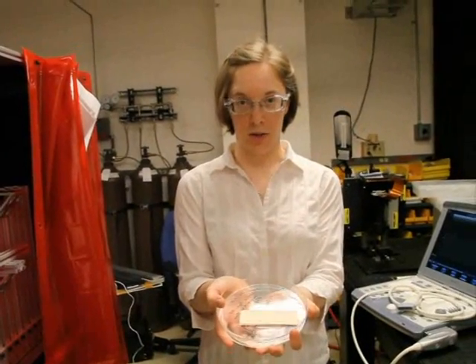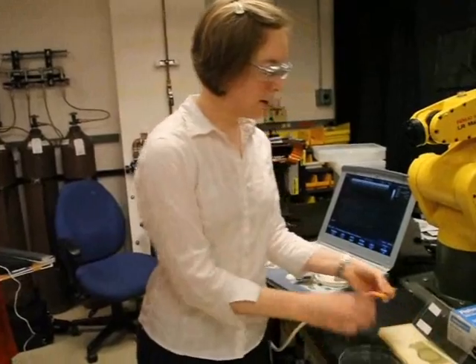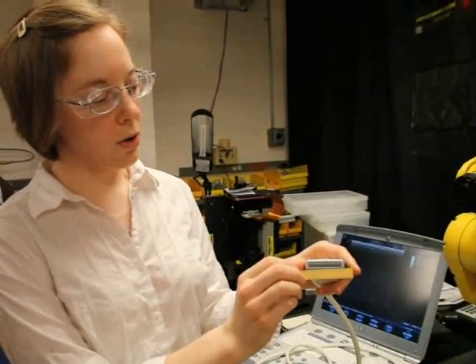Once the machine is complete, we have an Ultrasound Transducer, where we'll further process it. It'll get cut up and sputtered with gold and placed into this probe.